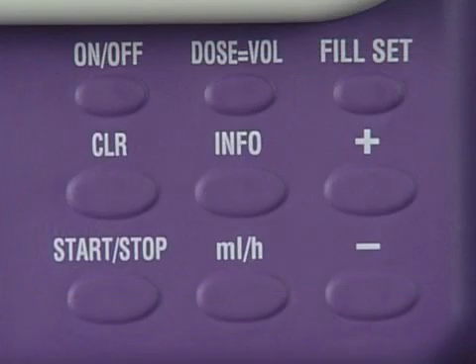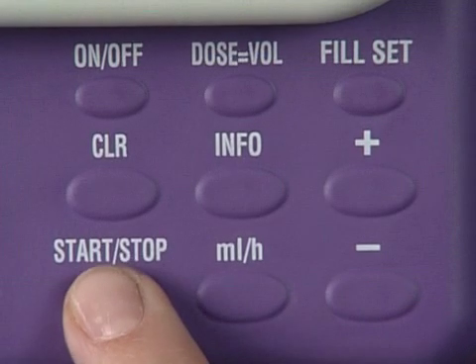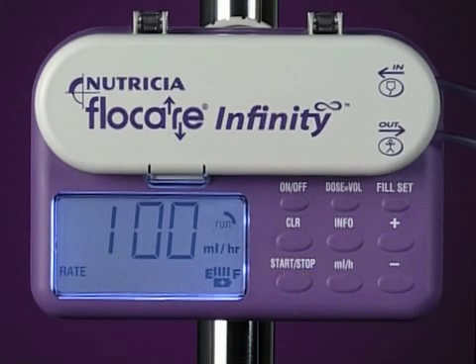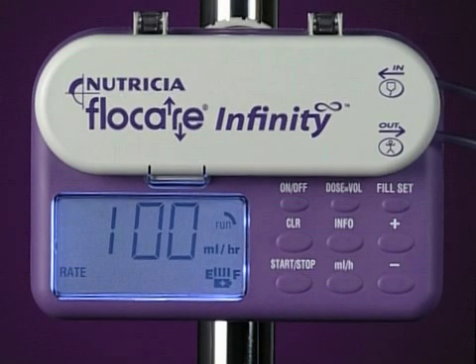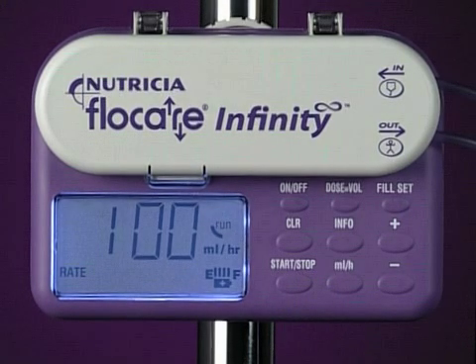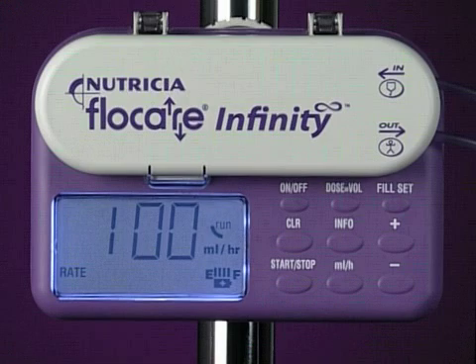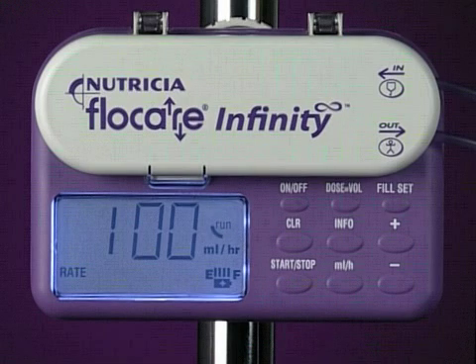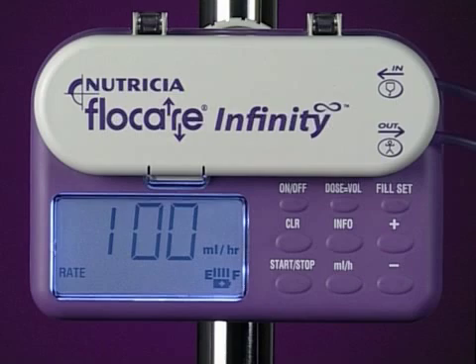Once you've pressed the start stop key, the run circle will begin to rotate to confirm that the pump is running. The flow rate remains in the display. If you want to limit the volume delivered, you need to add one step to the process.